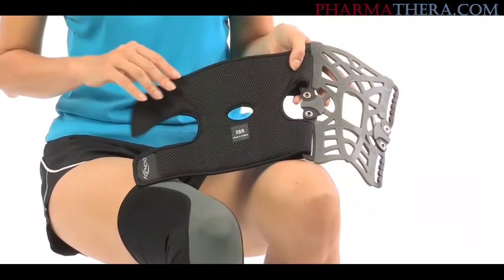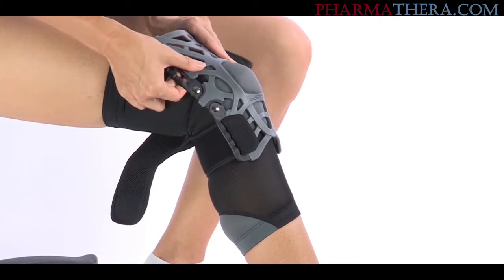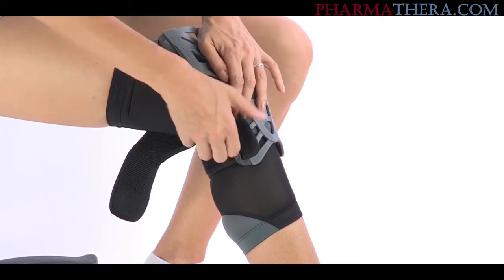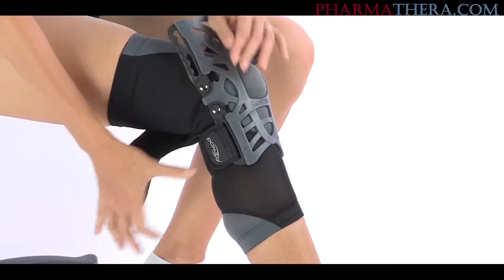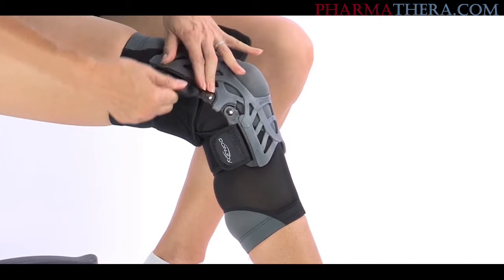The black pad, side down, should be facing the back of your leg. Center the web by aligning the opening with your knee. Thread the tabs of the back pad through the tab slots on the web, then press them down like so.